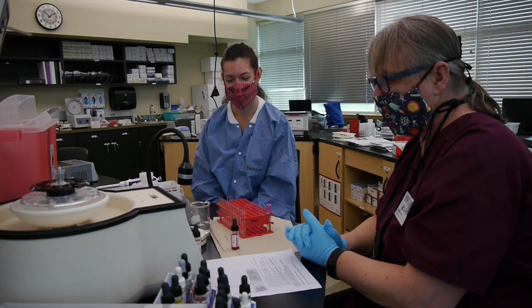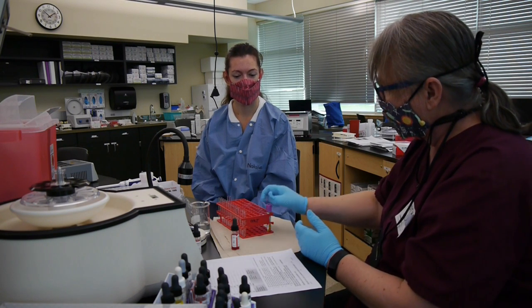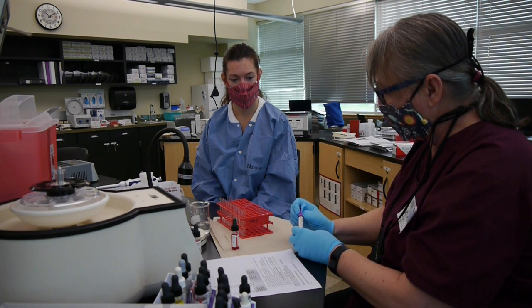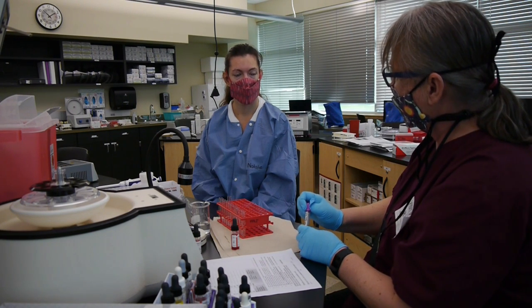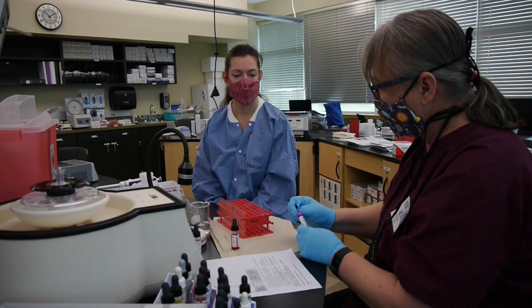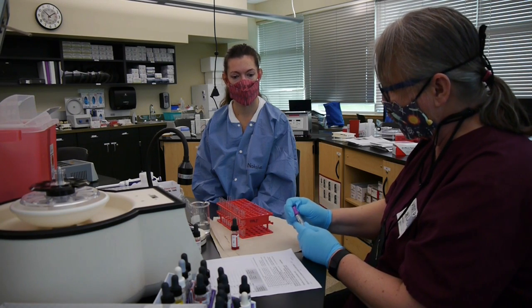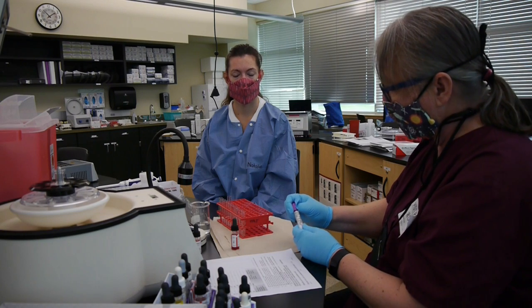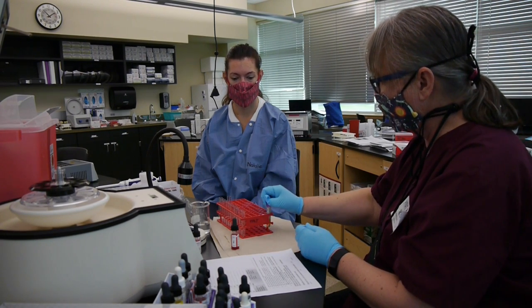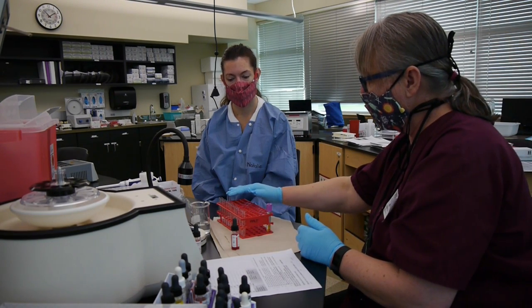This is an opportunity to do a titration using a platelet product — it's a group O platelet. We need to know the titer of anti-A and anti-B because we want to transfuse this unit to someone who is group A or group B. If the titer is too high, we can't do that. If you remember the ABO system, some group O people have high titers, and we would not want to transfuse those to a non-group-O person.